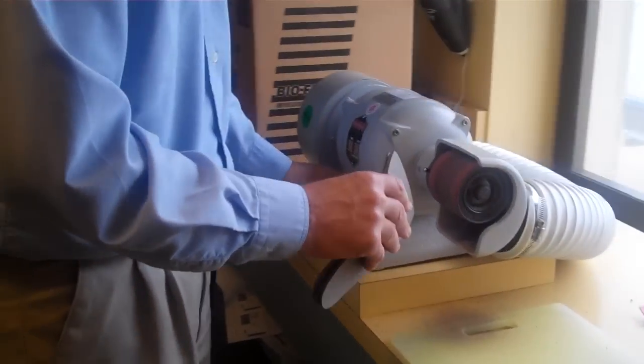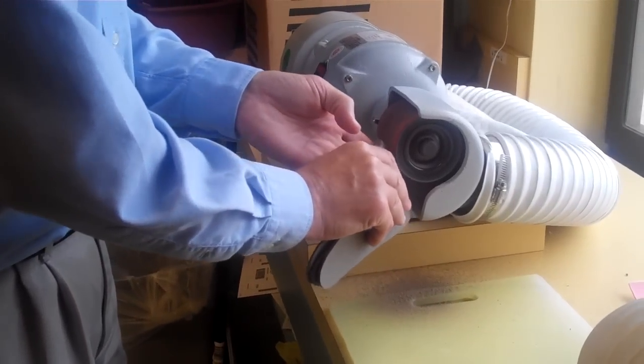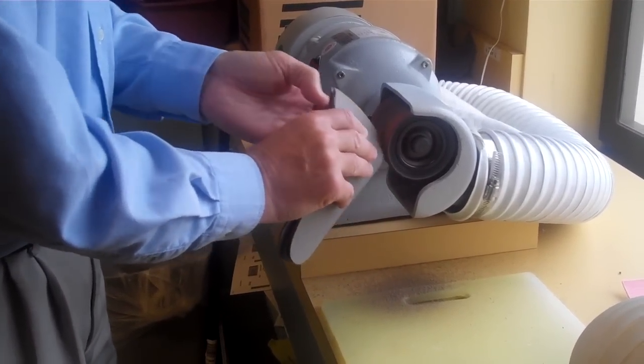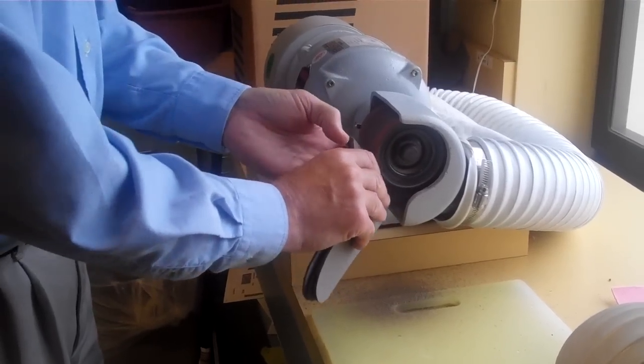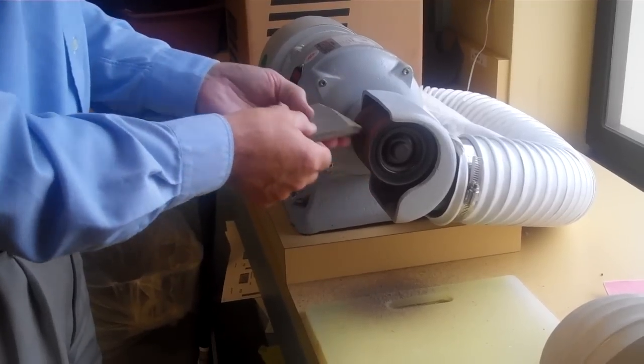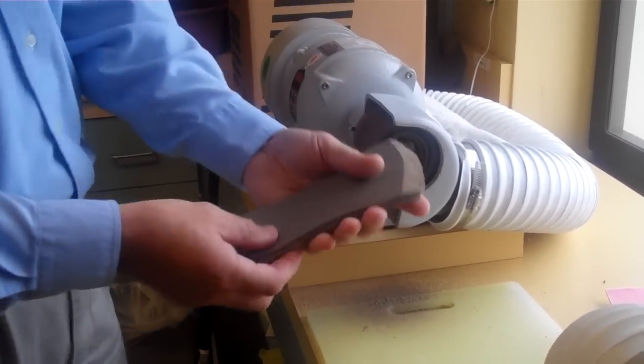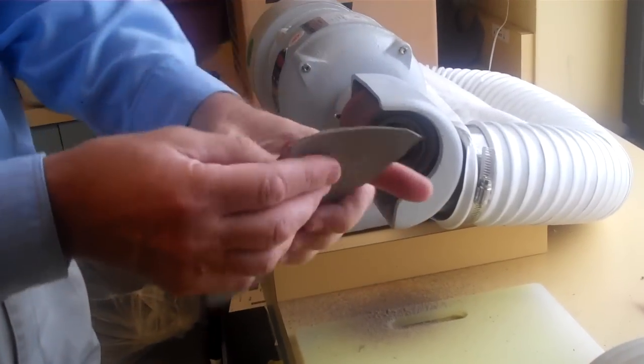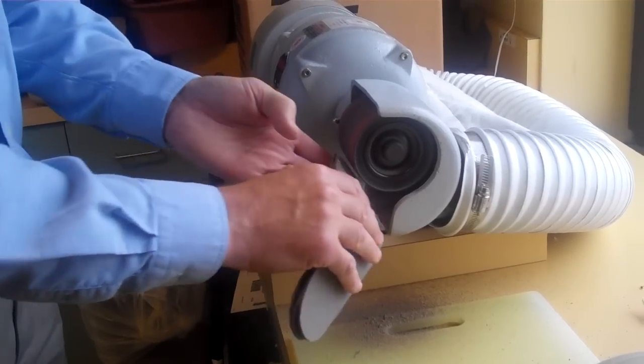We go to the grinding wheel, and I'm going to bevel the front so that when she finally has all 3 of them in, they will feel smooth at the end. So here I'm beveling the front edge of them to make our 3 lifts, so I want these as comfortable for Liz as possible.